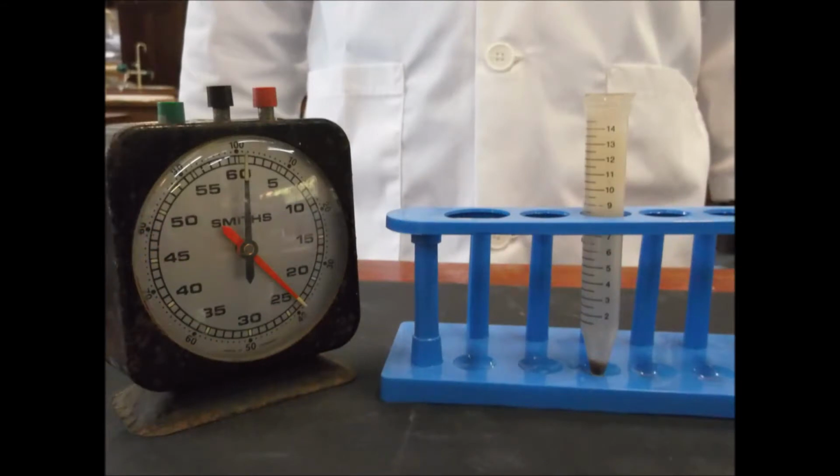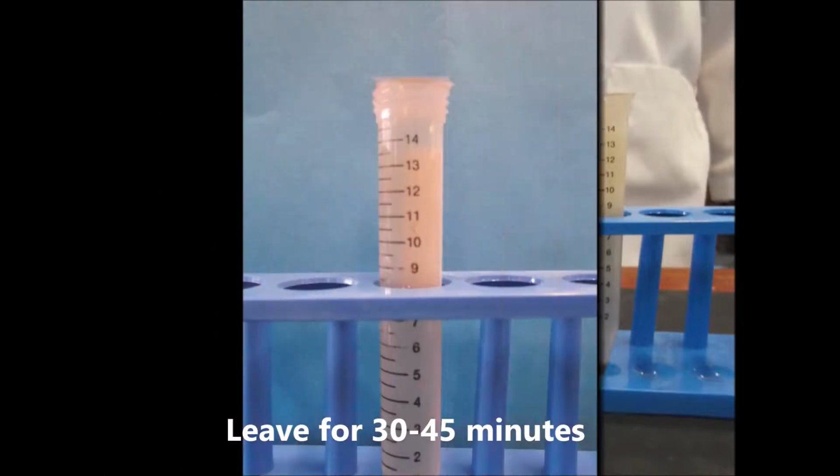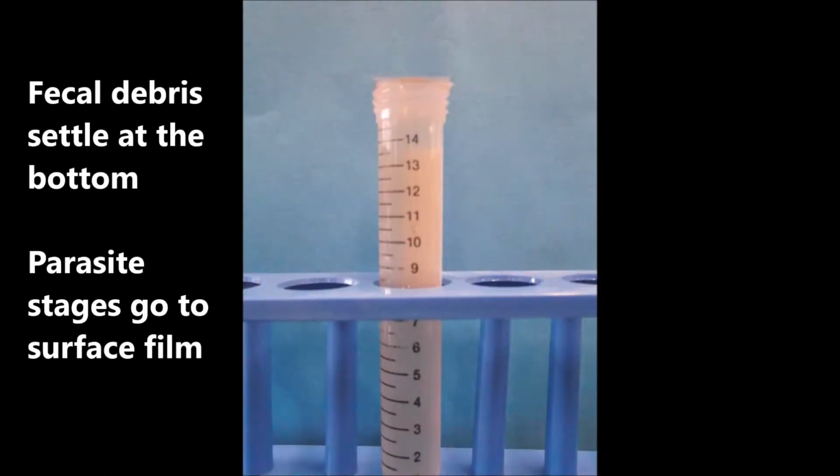Now you can leave the test tube undisturbed with the cover slip in contact with the solution for about 30 to 45 minutes. With time, fecal debris will be seen at the bottom of the tube, and the parasite stages will go up to the surface film.